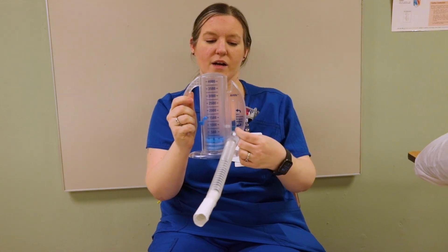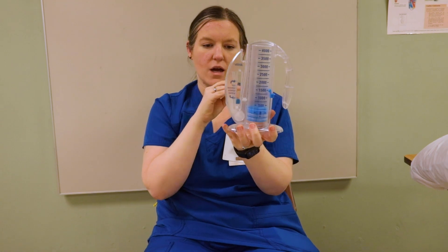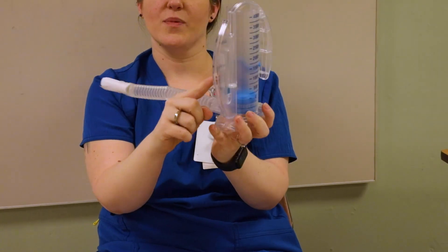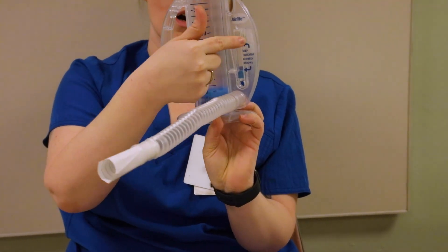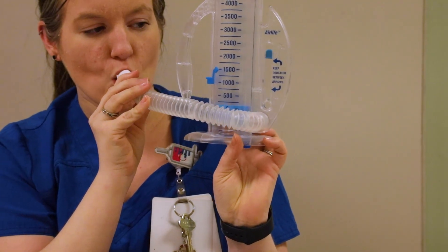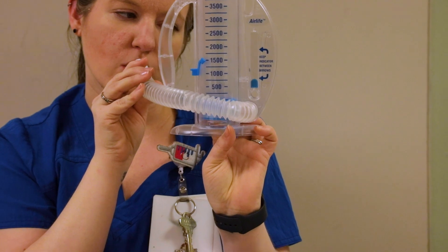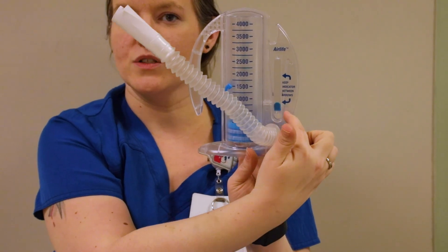There's this little blue thing right here — I'll breathe into it real quick so you can see how it moves. You need to have the patient get this little blue marker between these two arrows, and that's where it needs to stay. If they breathe in too quickly, it goes up too fast; if they breathe in too slowly, it won't go up at all. To get a good breath, you need to keep it between those arrows.